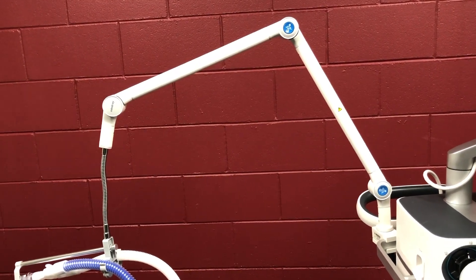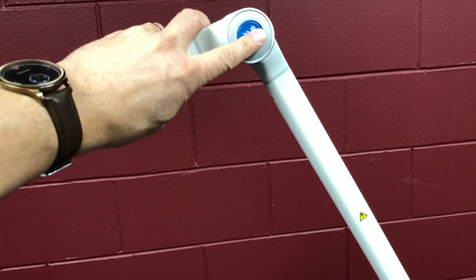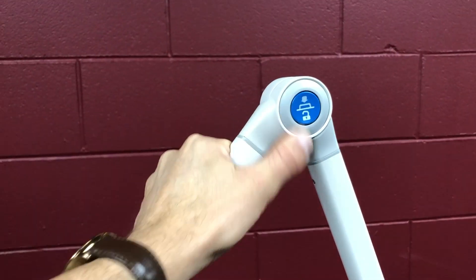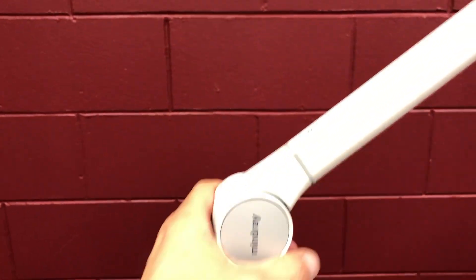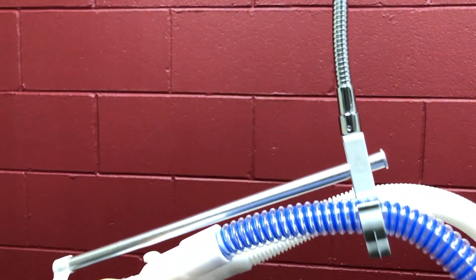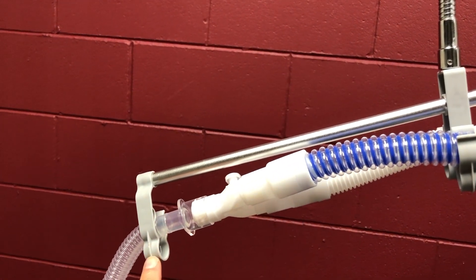The arm to hold the circuit has got a range of flexible joints. These blue ones allow you to pull the arm just up like that. And if you want to go down, you push them in and then they have a locking mechanism there, so you can lift them up and unlock them to reduce the height. There's another one here which doesn't have that locking — it's just a straight elbow. There's a flexible apparatus here which, as you get closer to the patient, provides you with a little system which doesn't get in the way but gets you closer to provide support for your tube.